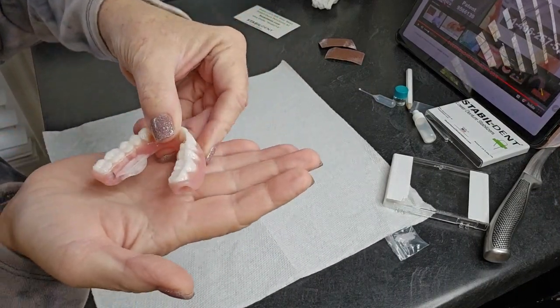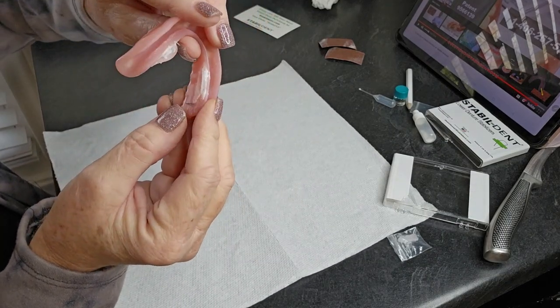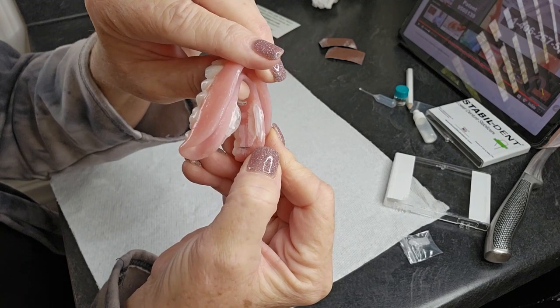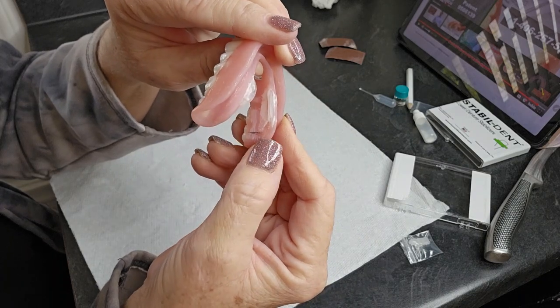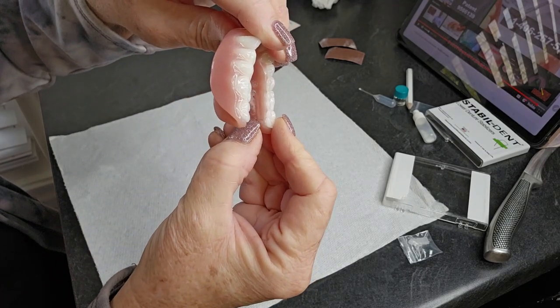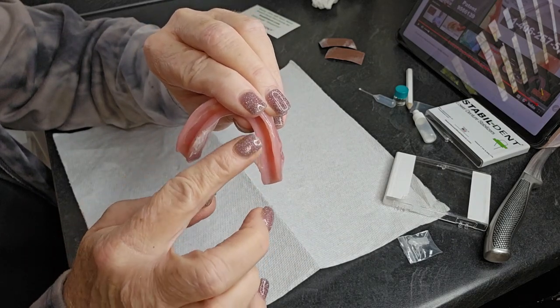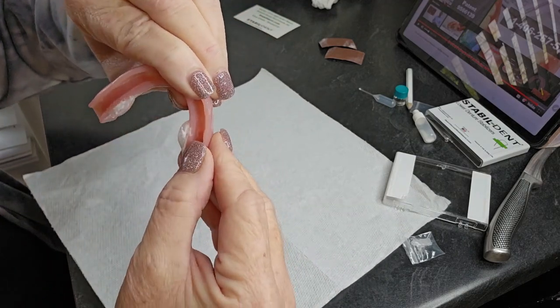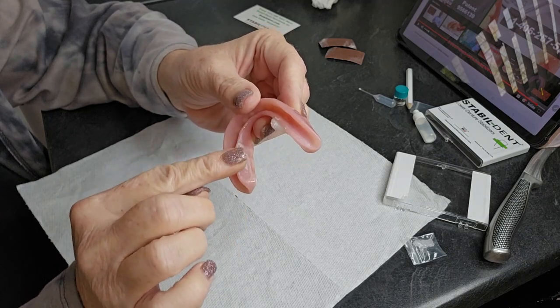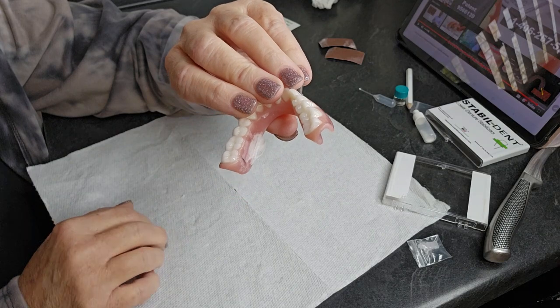We are back. I've got both pieces on here. The denture had to sit for an hour. Here's my pencil mark — that's right there, so I'm close to where it should be. This was very hard to put in place. Let's look at the other side — here's my pencil mark, same thing, I'm a little closer on that side. It says if there's any rough edges to file this down. This side is up a little bit too high. I'm going to file this roughness down and go wash it.